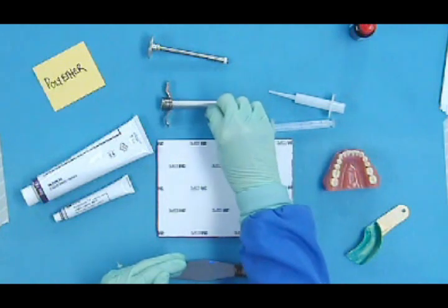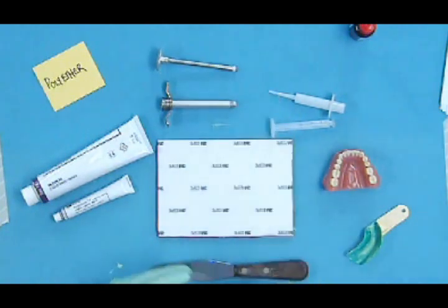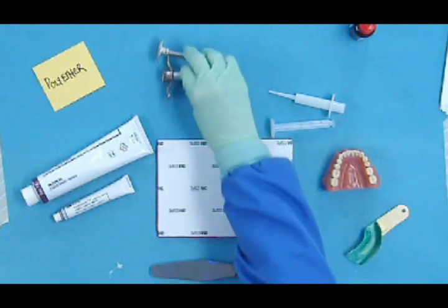Or you may see some offices that have these reusable syringes, and I'll show you how to use both of them. I'll work with the disposable one first.